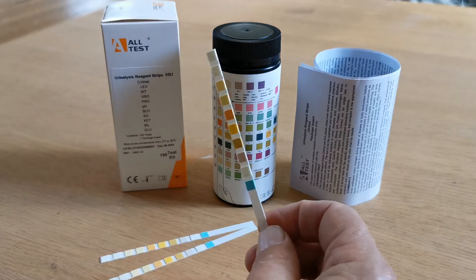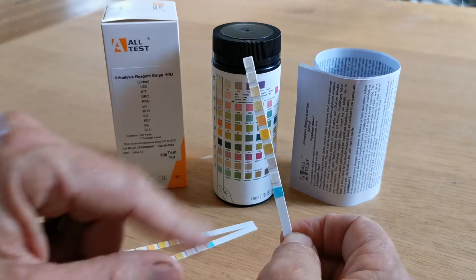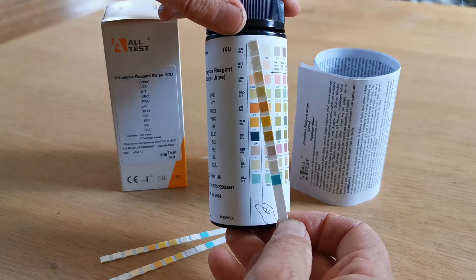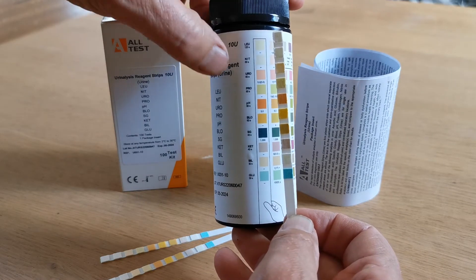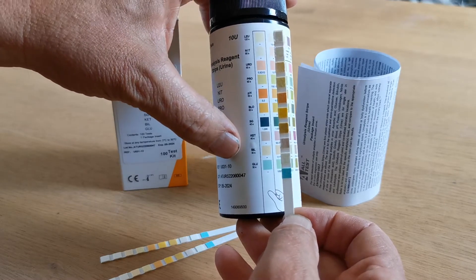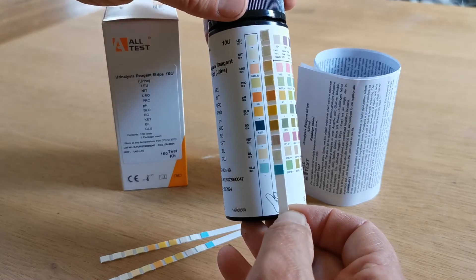Now let's have a look at one of these urine test strips. Standard format, standard combination for the 10U — it contains a test for leukocytes (white cells), nitrite, urobilinogen, proteins, pH, blood, specific gravity, ketones, bilirubin and glucose.